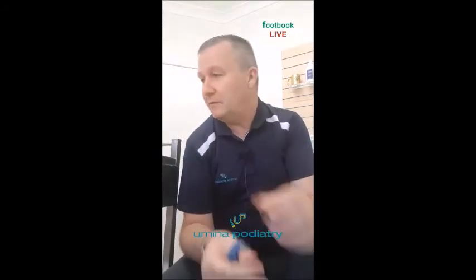I measured it earlier on and it was much lower than that. It could be because I'm squeezing my thumb together. Anyway, this is a really useful tool for us to check the blood pressure in your big toes.